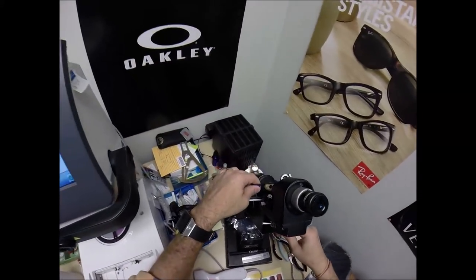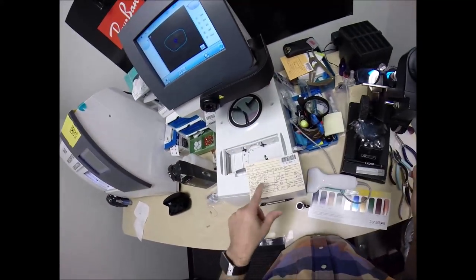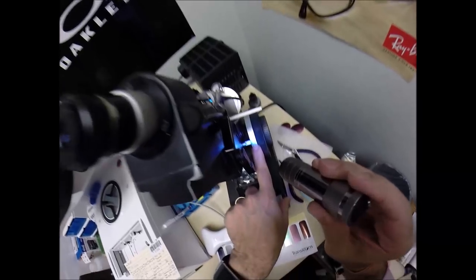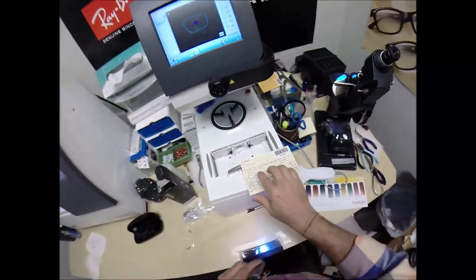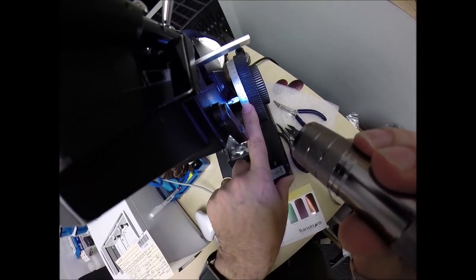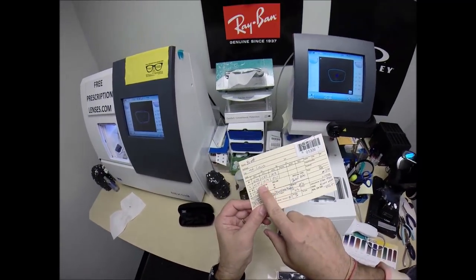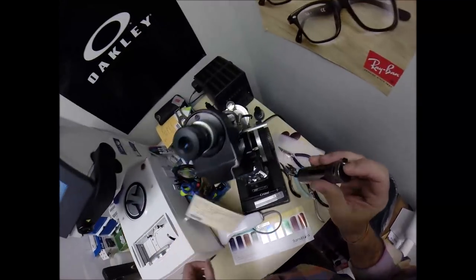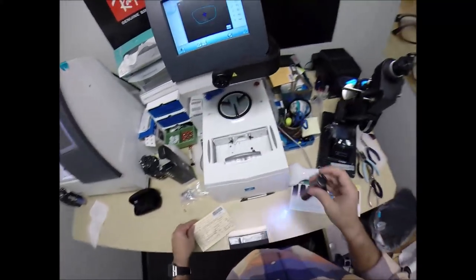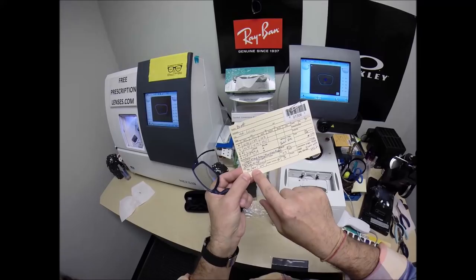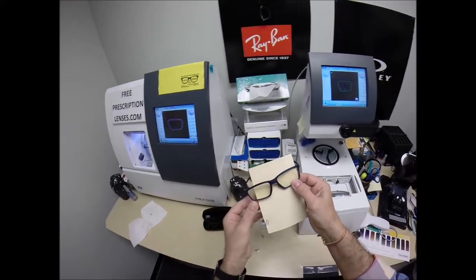Turn the fine-tune knob to 10. Check the power, and I'm getting plus 1.50. You have three steps of astigmatism correction. Let's check that second curve. We're at plus 75. Your pupillary distance, 34 for the right eye, 33.5 for the left, for a total of 67.5.